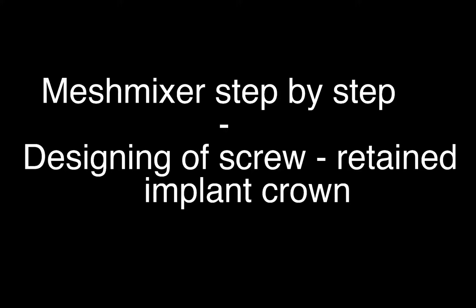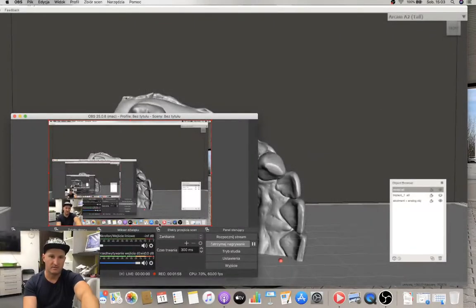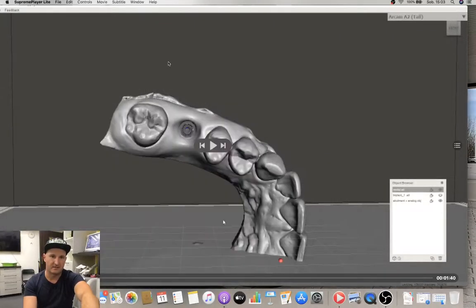Mesh mixer step by step, in which I will try to show you how to create and design a screw-retained implant crown and, let's call it, an individual healing abutment that you can 3D print by yourself and use very easily. In fact, it took me about half an hour, so let's start.